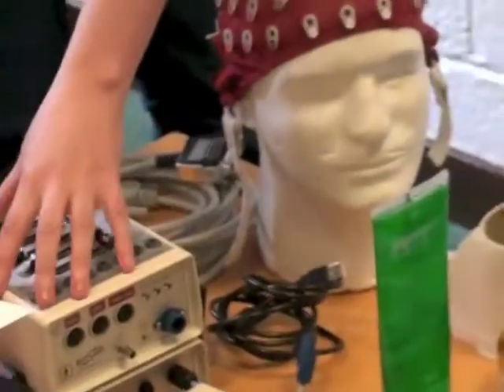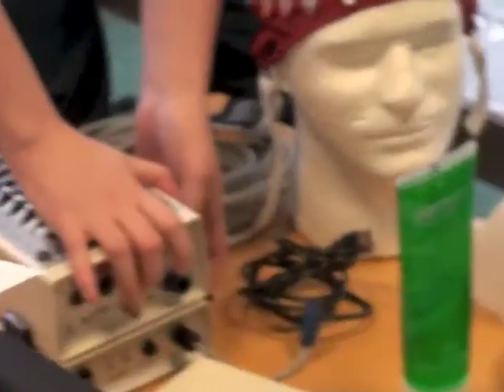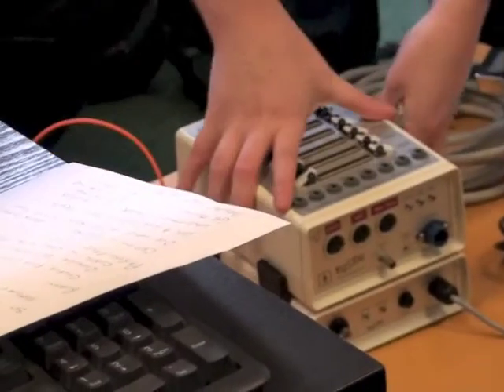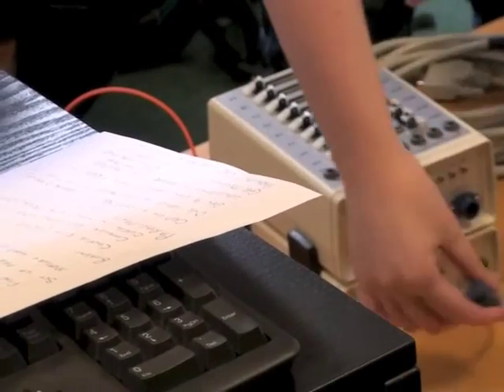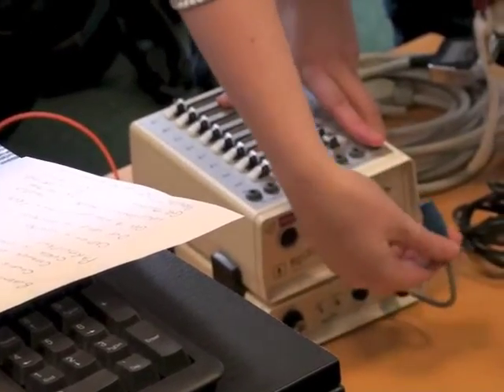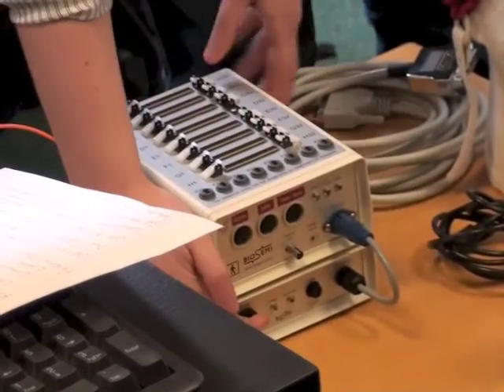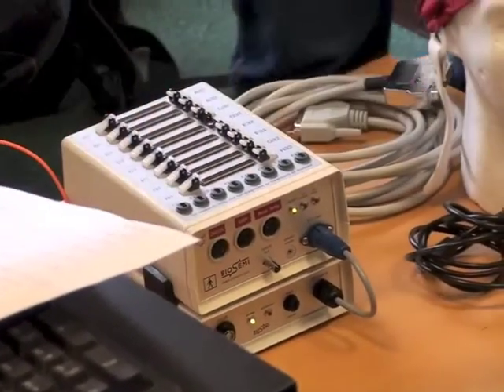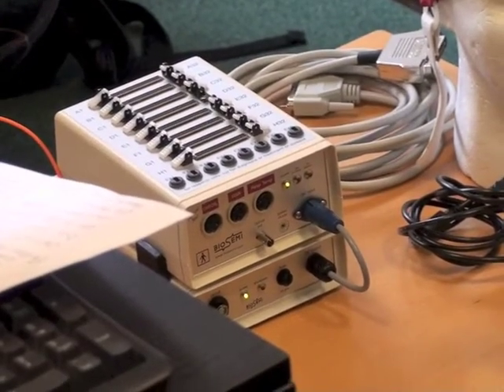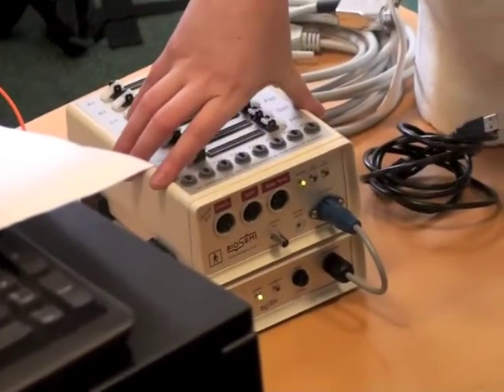So the battery is here. This is the main EEG box that everything gets plugged into in a minute. I just sit that on top of the battery. It clips on. And then this is just a plug from the battery to the main EEG box. Sorry, I've never done this upside down before. Okay, turn on the power, and there should be a green light on both boxes if they're connected, which there is. And the battery light isn't blinking, so I know that it's okay for charge.